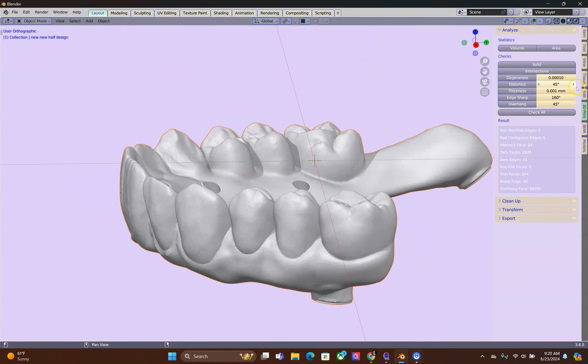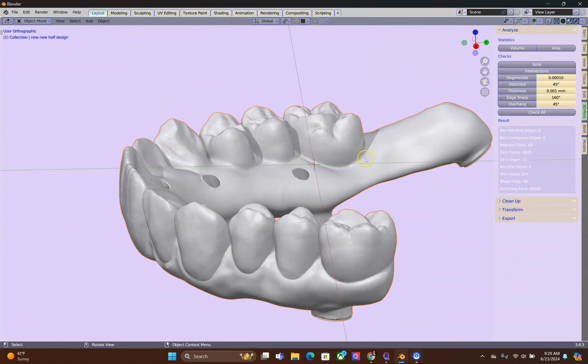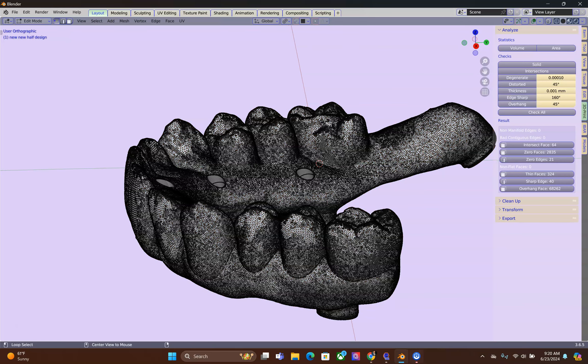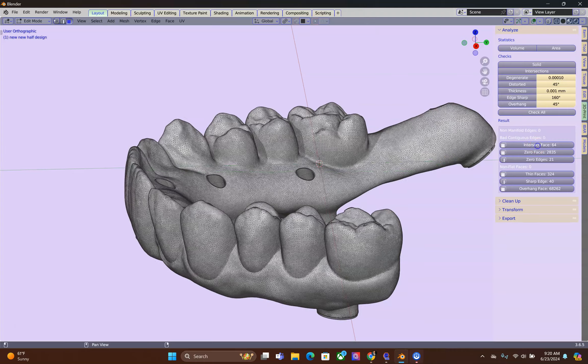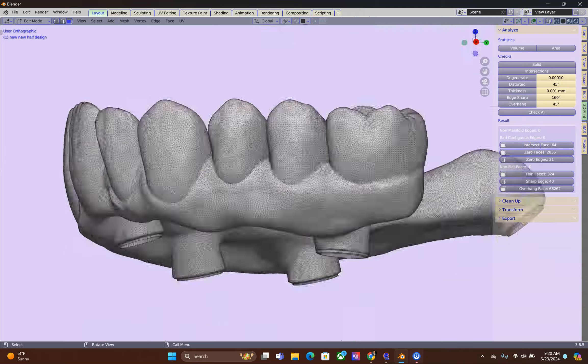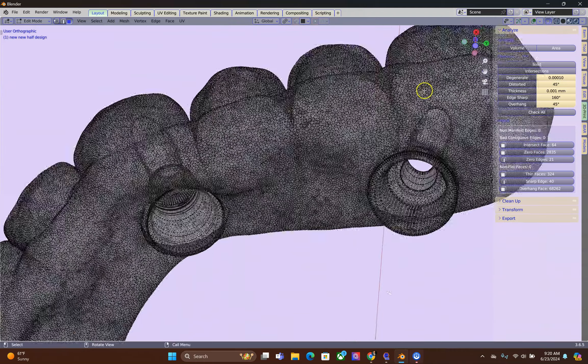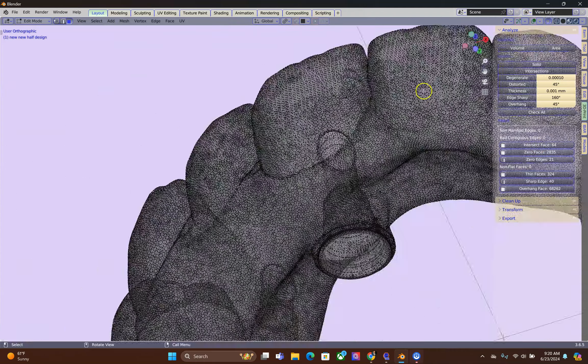Okay, in this example we're going to go to the 3D print, and that's generally speaking what I always do. Tab, Alt, A and then have a look and see where the problem areas are, the intersecting faces.